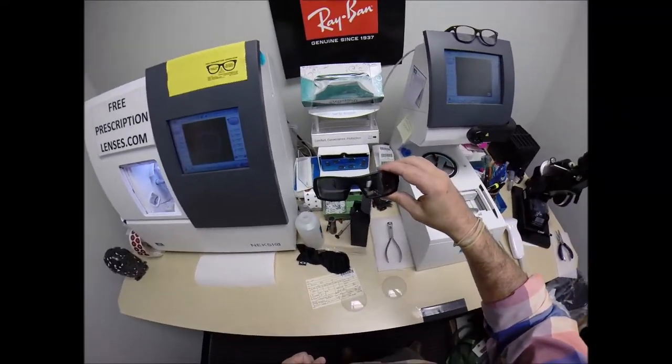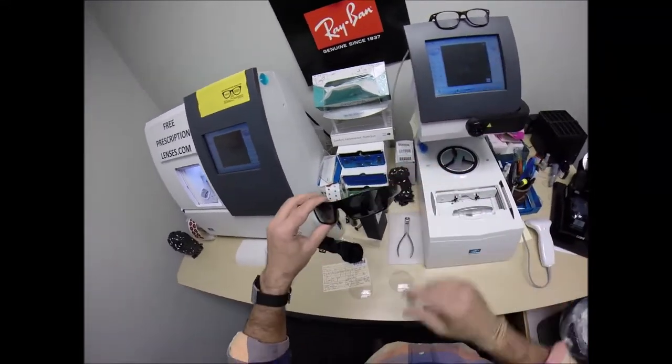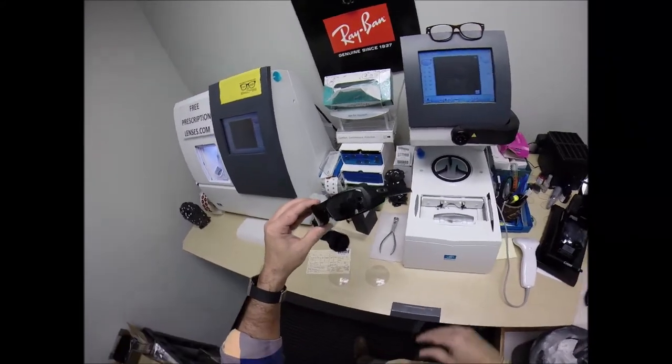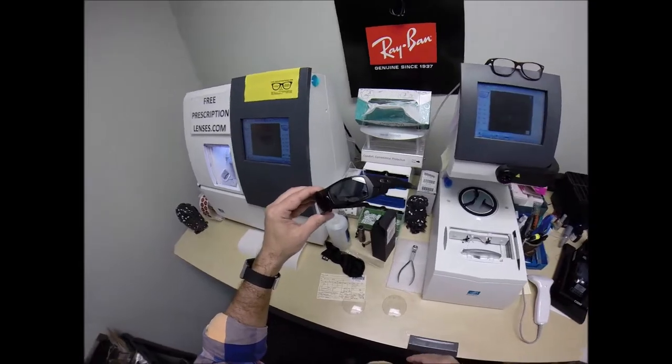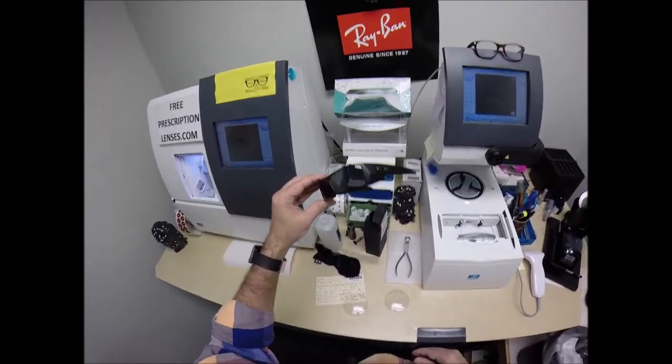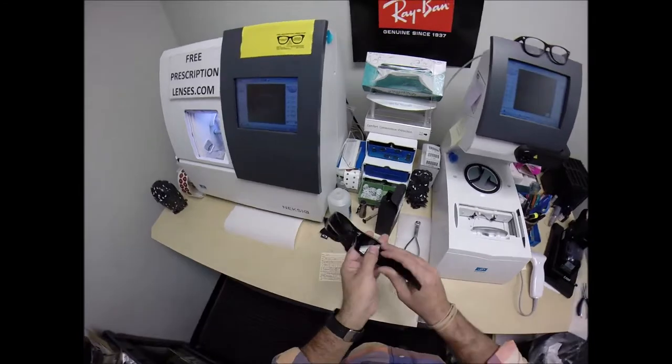I had to order specifically designed lenses to match the curvature there. Great all-around practical frame. Anybody wants one, you can either email me or call me. Tell me which size, color, and model you want, and I'll make it happen.